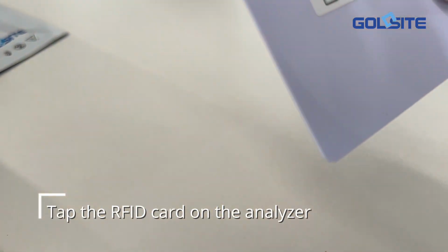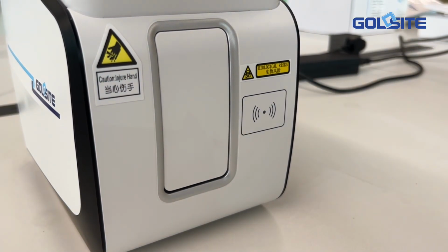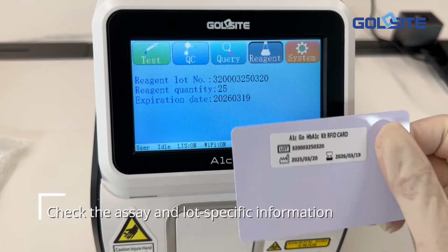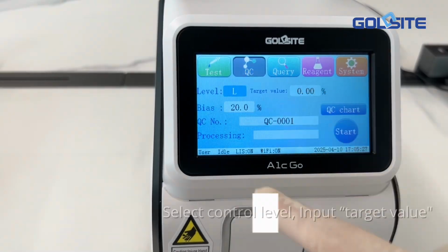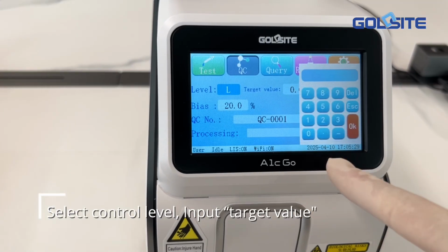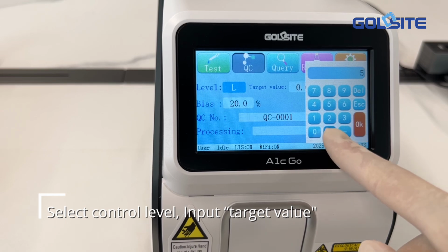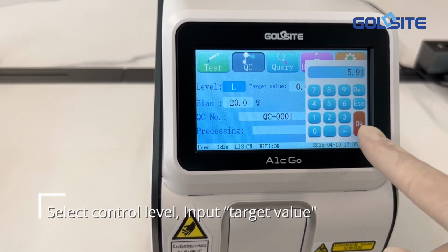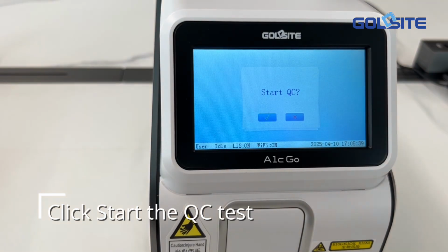Tap the RFID card on the analyzer. Check the assay and lot specific information. Select control level, input target value. Click to start the QC test.